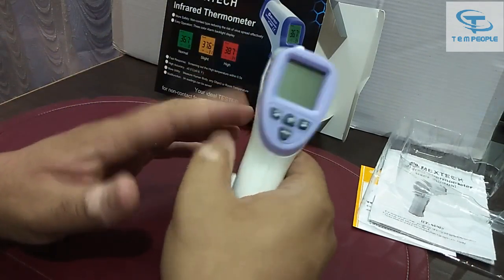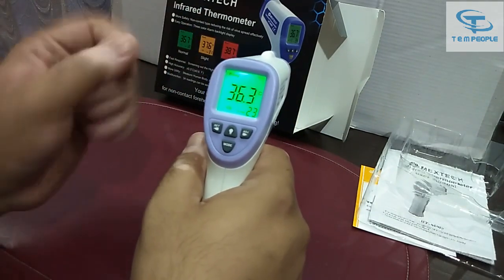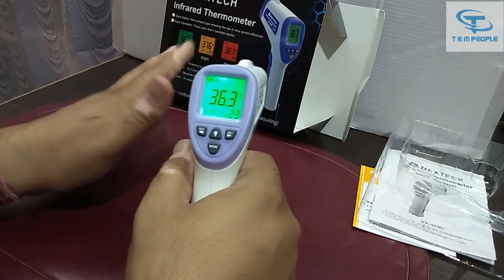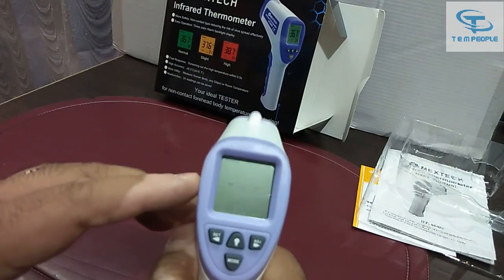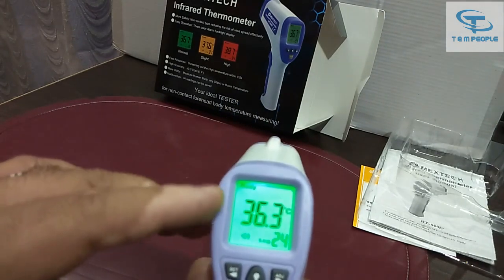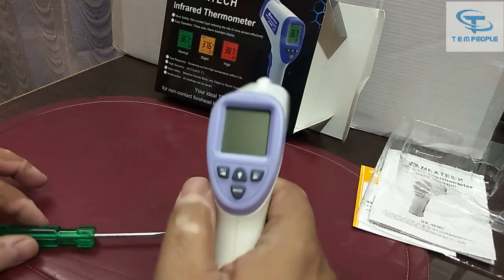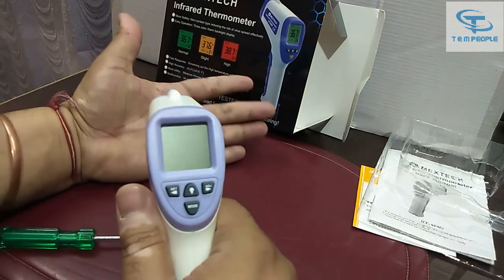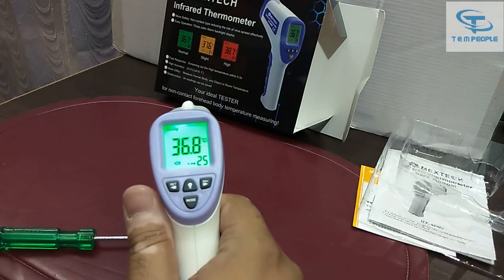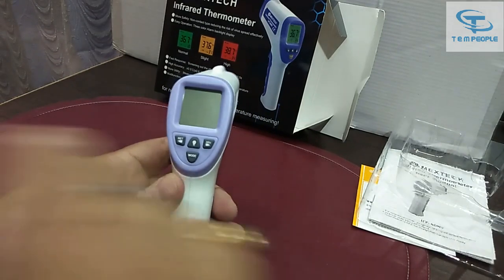When you press this button, the meter turns on and can measure temperature. You can see it is set to body mode, and it is displaying in degrees Celsius. Let's see if it's working — yes, it is showing temperature in degrees Celsius. In India we commonly use Fahrenheit, so let me show you how to change the setting.